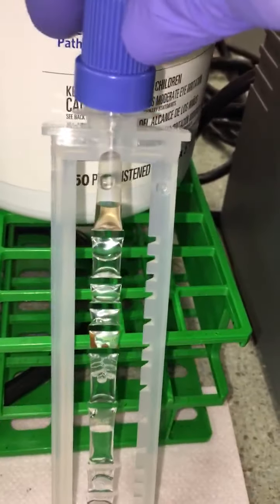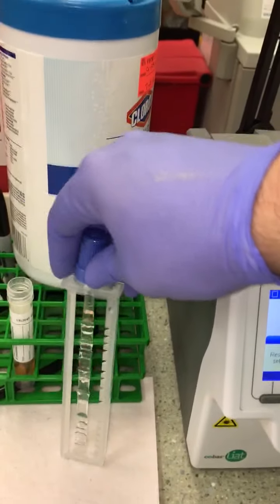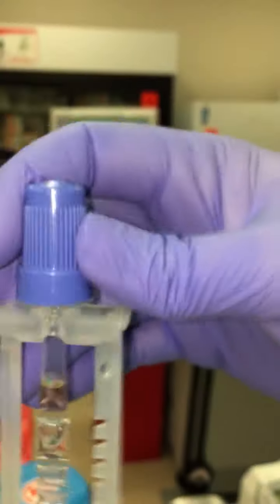I'm going to grab my cap then. I'm going to recap my cartridge here, okay? Like I said, give me a minute while I work with only one or two hands. So I'm going to get you out of view for a second. I'm just capping the sample, you're not missing anything at all. And then at this point, I'm going to gently flick my cartridge to allow any residual sample at the top of the coupler to go down. You can see that's a very clear, smooth application of the testing liquid.